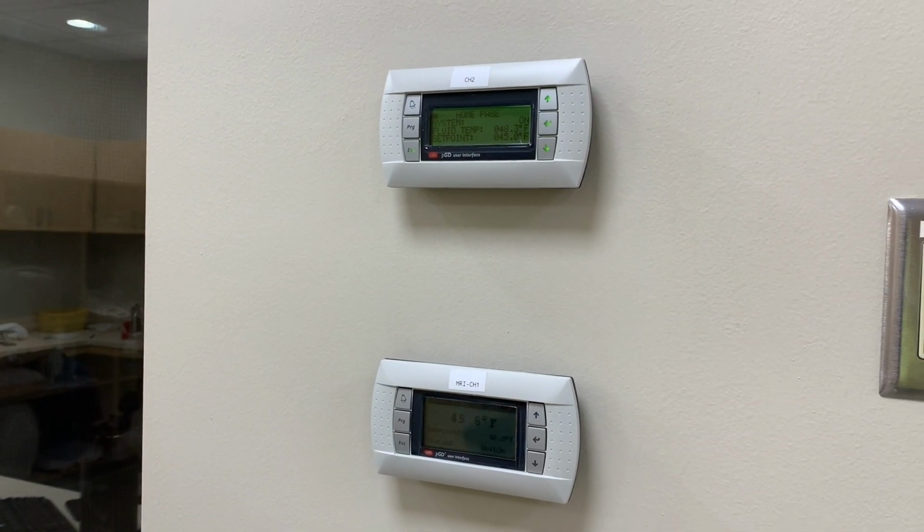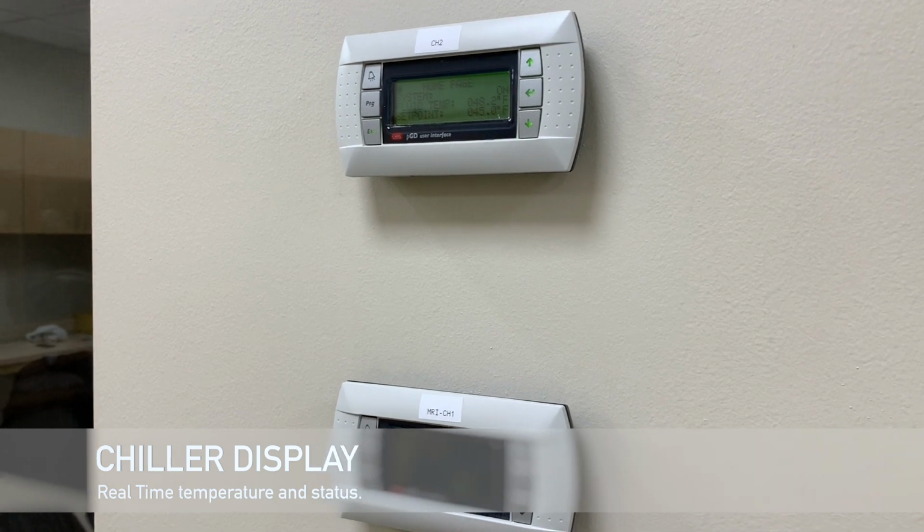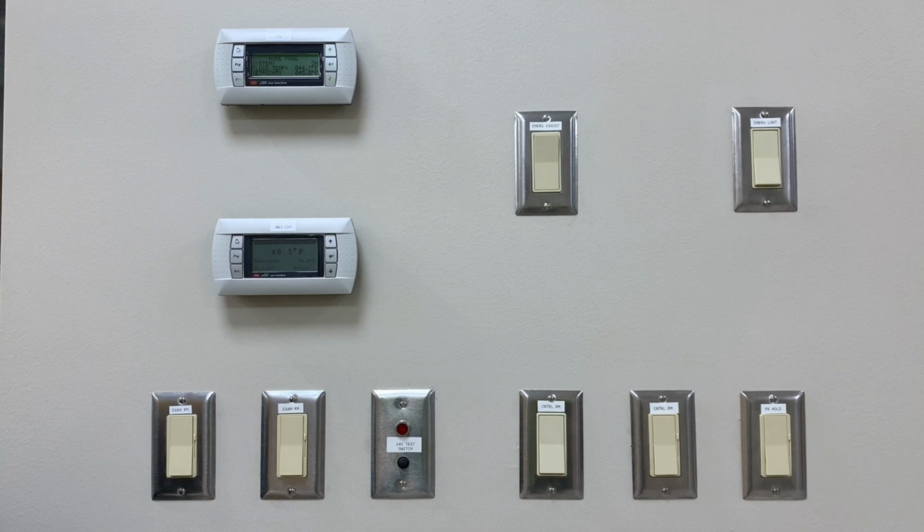These two monitors here are the chiller displays. They have real-time temperature and statuses of what's going on. The chillers are located on the roof, so it's nice to know their temperature at all times. This will also give someone a status indicator if something's wrong.